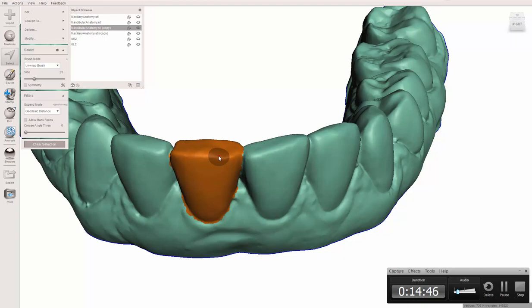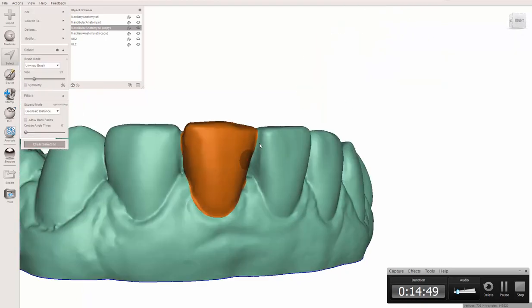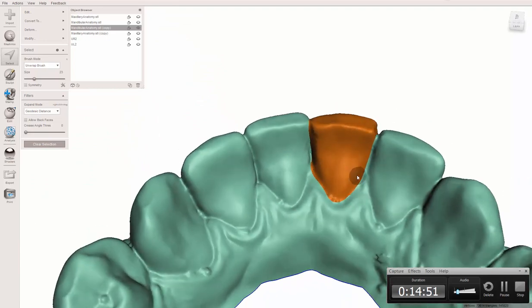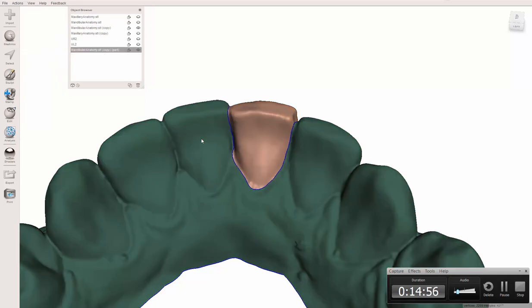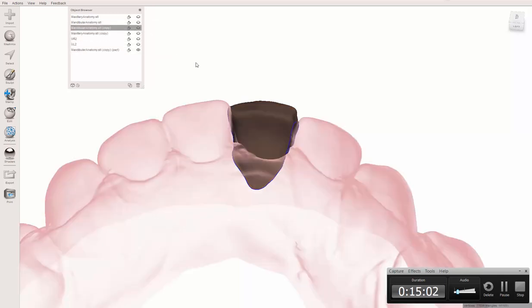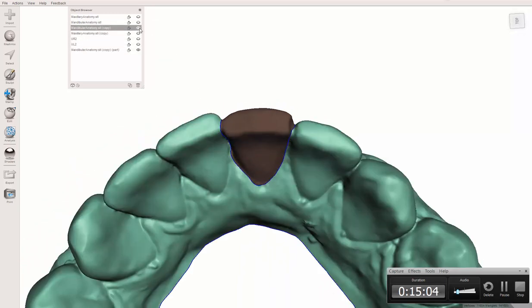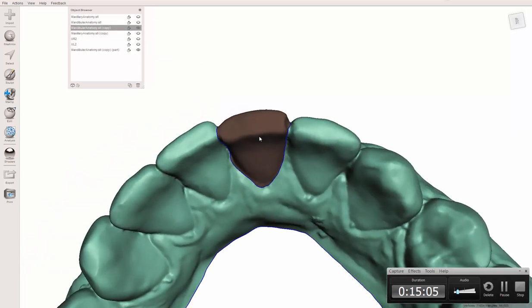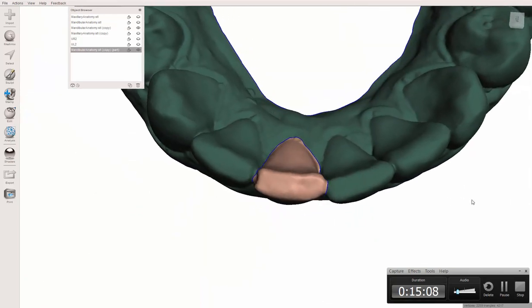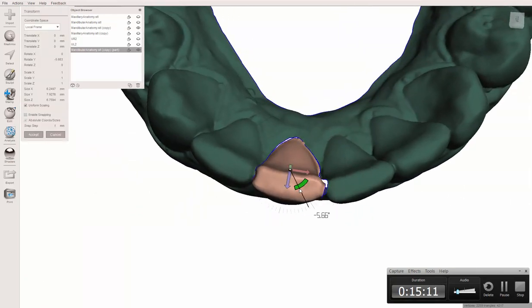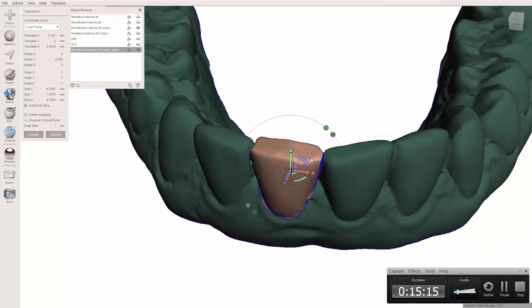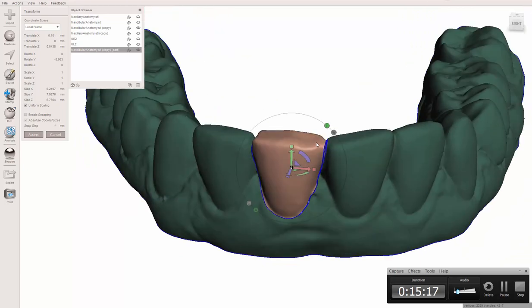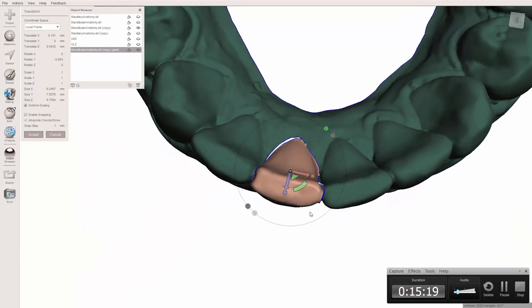This is something that if you've got a busy office and you can do a fair amount of ortho, you want to finish off some cases with just minor tweaking. This could be a tool to have in your belt. Train a team member to take this on to just finish things. You tell them, I want this tooth here, this tooth there, and let them have at it. I can see that being a nice little finishing touch for people. Hit B, and honestly, you can do the same thing with Hawley retainers.